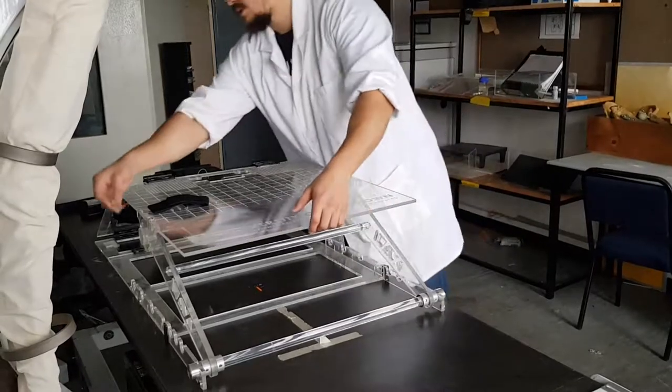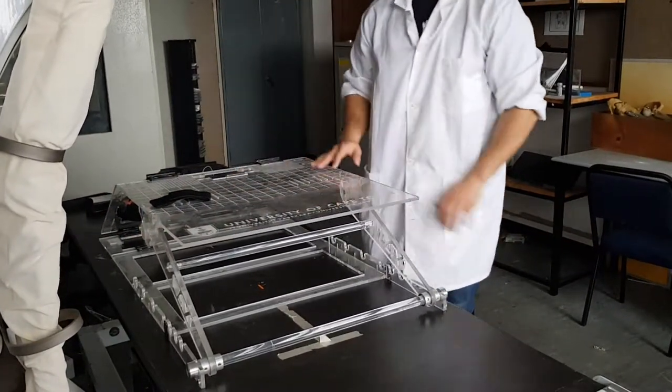Take your clips or your pins, simply pop it in the slots and you're good to go.